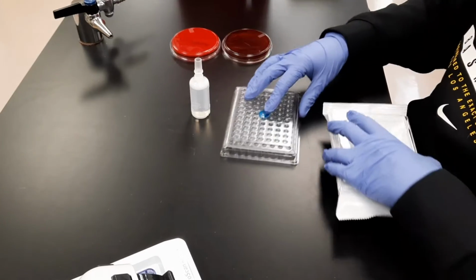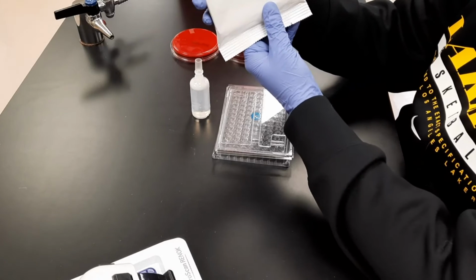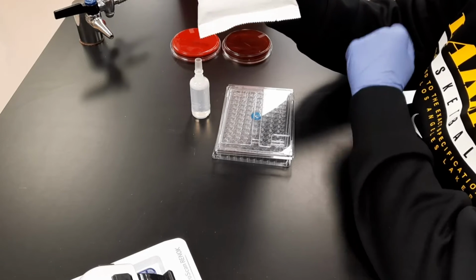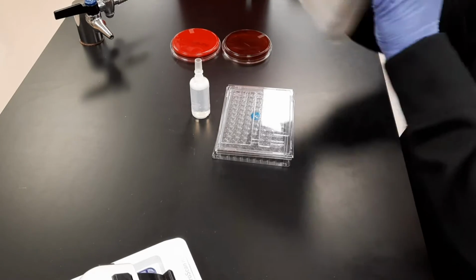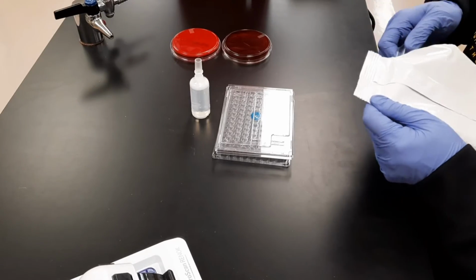Check the integrity of the panels and allow them to come to room temperature. A gram stain must be performed before inoculation of the panels. The panels are specific for either gram-negative or gram-positive organisms. Results may be invalid if a gram-positive is loaded on a gram-negative panel and vice versa.